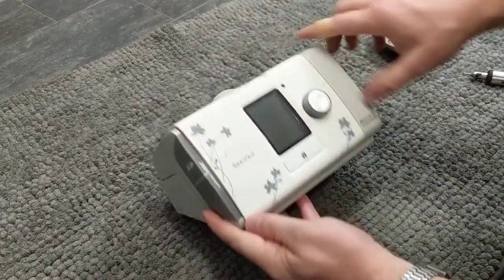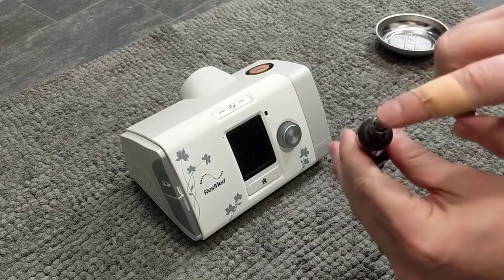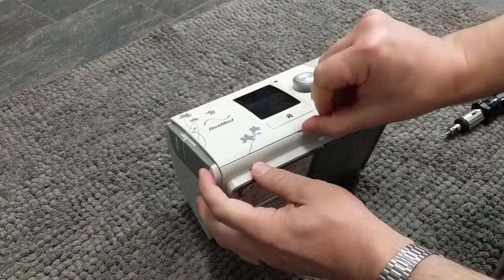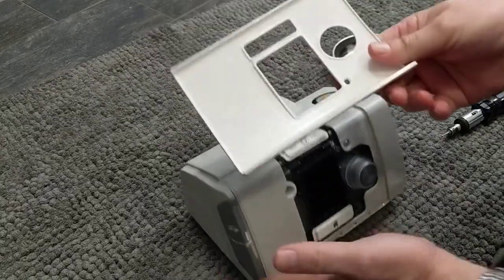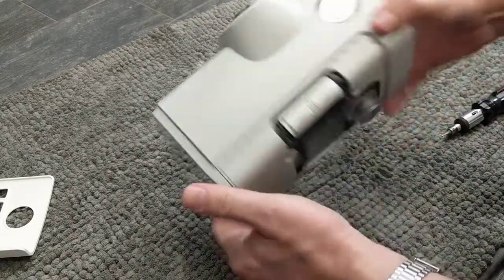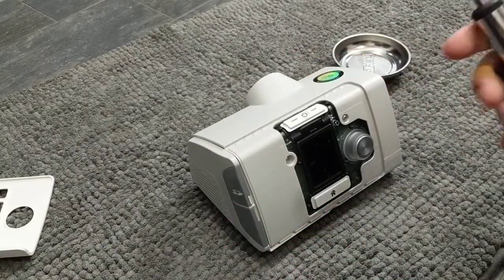The cover plate is just for aesthetics. In terms of tools, really just one: Torx number 10. That will undo all the screws. That's step one — it reveals two screws here on the front, and the other two screws you need are these two at the very back, one there and one there.